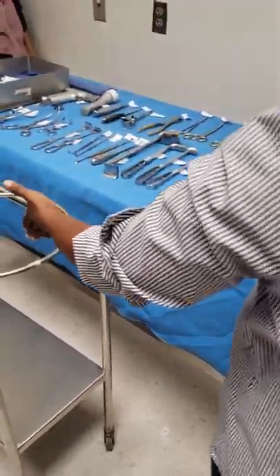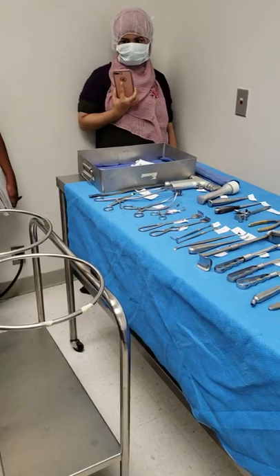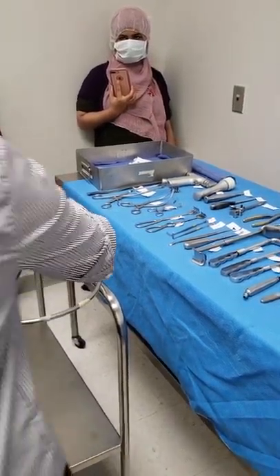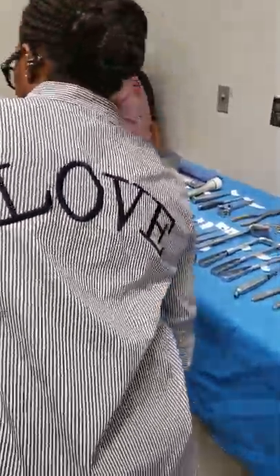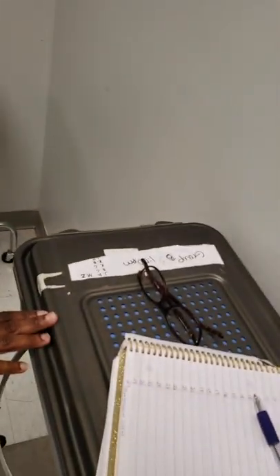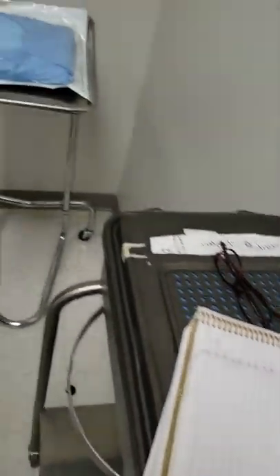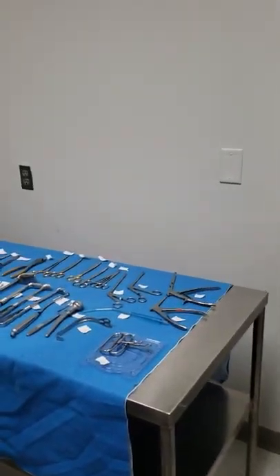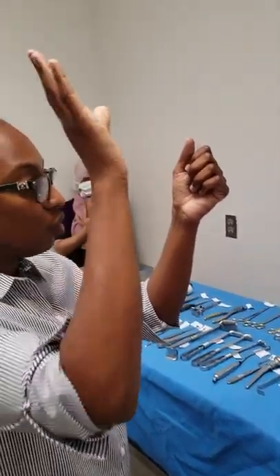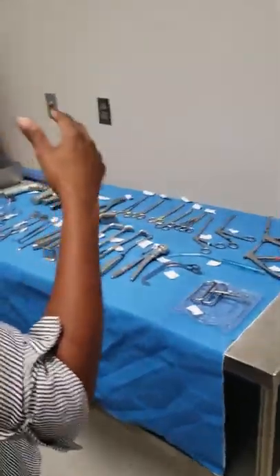After my back table, what's next? My ring stand. Next thing I open up is my ring stand — I'm grabbing the corners. After I open that, my next thing is my instruments. I open up my instruments, I pop the tray, I look at the filter part — see anything? Nope. The tray itself — just the top — goes up on the table.